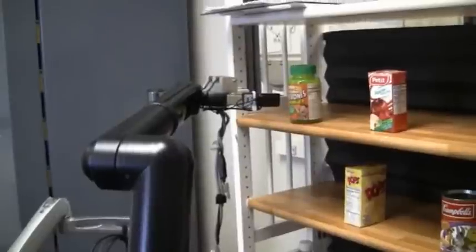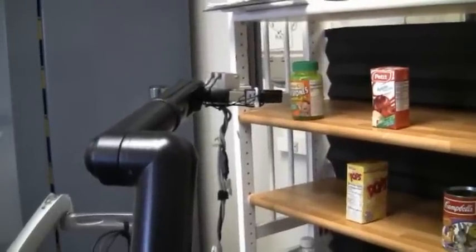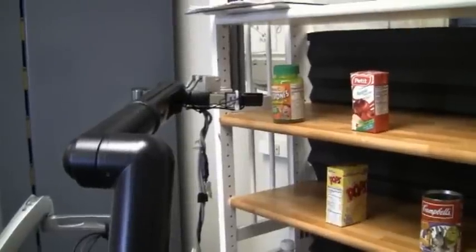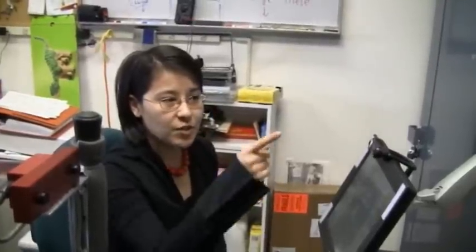I am trying to figure out which object you selected. I see that you want the vitamins. I am trying to figure out where to put my fingers to try and figure out which object that was and compute little points to move towards.